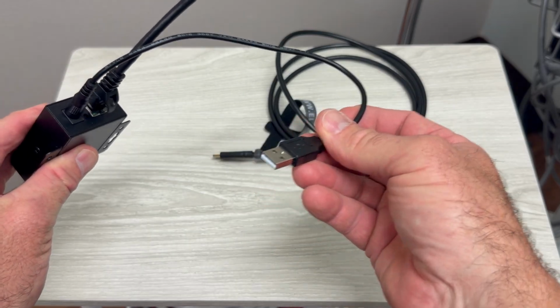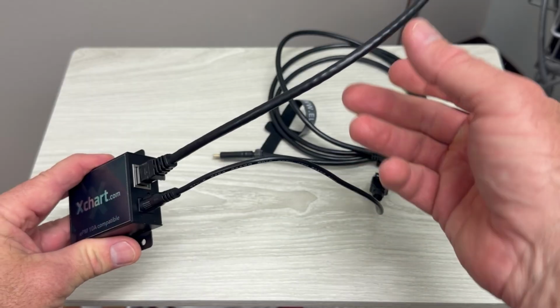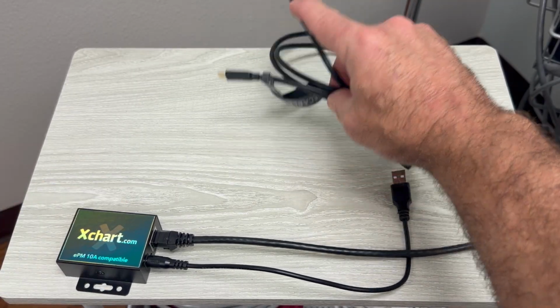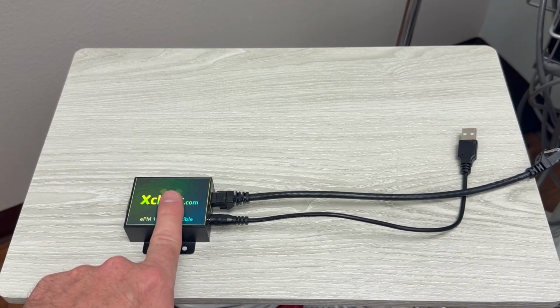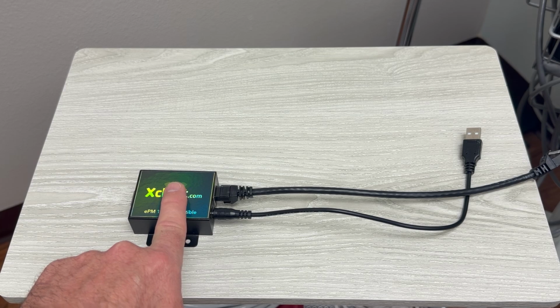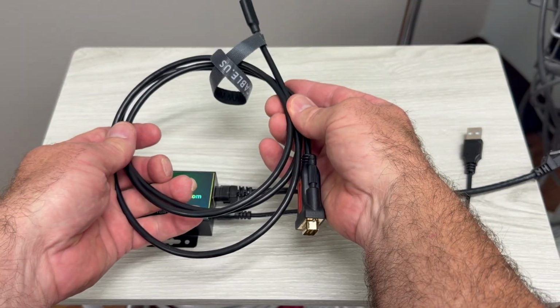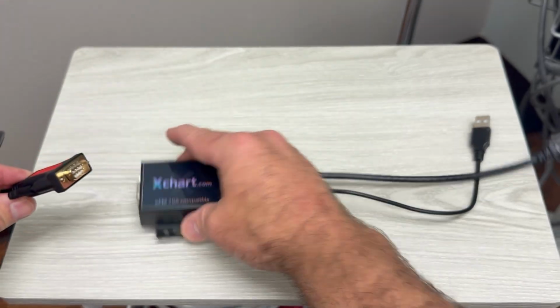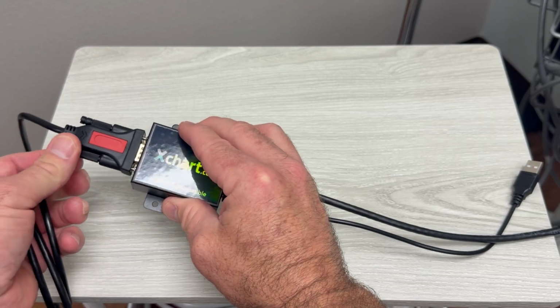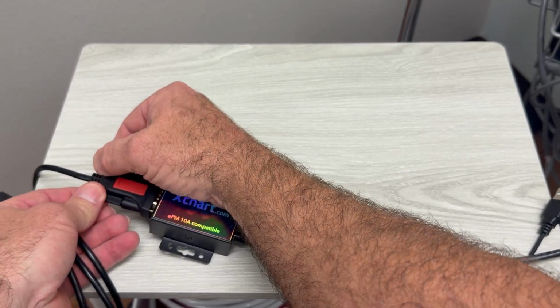So this USB port will plug in the back of your monitor to apply power to this unit, and this will be a communication cord. When it comes to leaving the device and going to your Heartland computer system, it'll be pushed from this device to the computer through this cord and cabling. If you look on the other end, it'll have this connector, kind of like a connector you'll see with stereos and other types of equipment. You'll be plugging that together here in the back end.